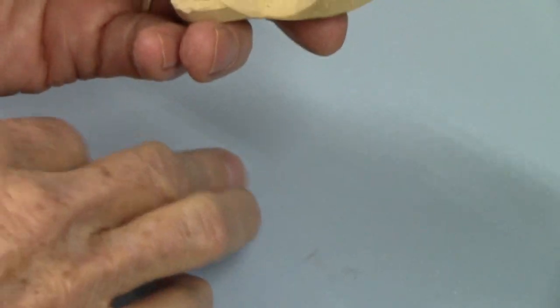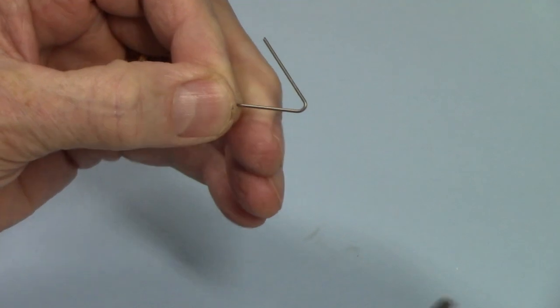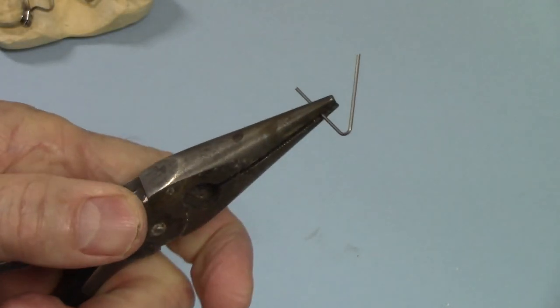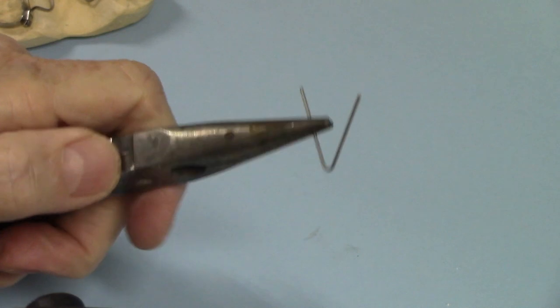Here's a piece of leftover wire and I'll show you how I anneal that wire. The annealing process is simply heating it up and allowing it to cool slowly, so that it takes the stresses out of the wire and toughens it up.